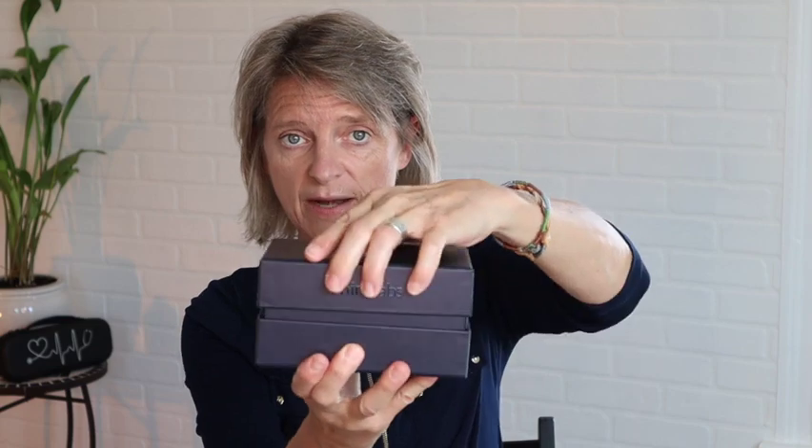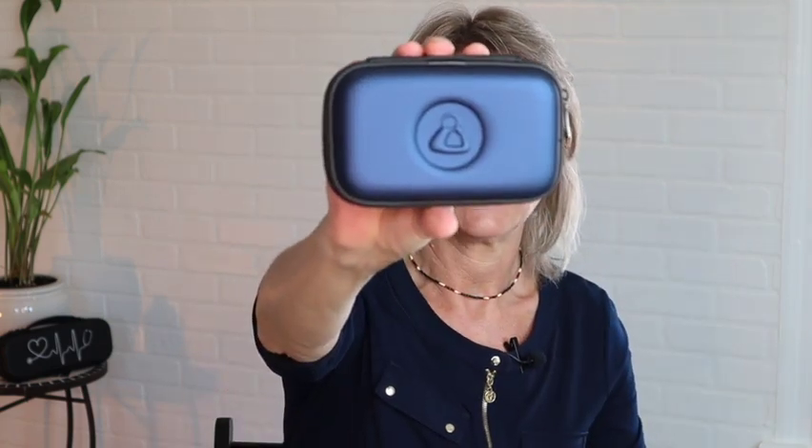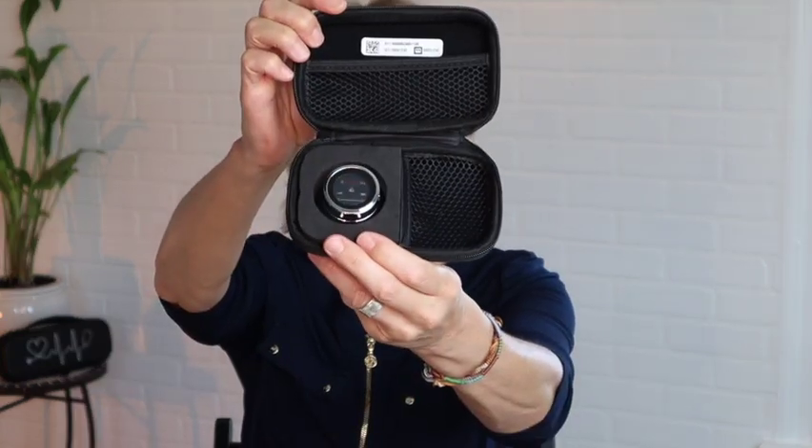So the first thing we're going to do is slide this out — it's just a cover, and then this is the actual box. We're going to open it up. It has the course booklet that tells you every little detail about it. It comes in a nice little blue case with the ThinkLab stethoscope logo right on the outside. This is the digital stethoscope. When you open it up, it's in a little case like that — it looks pretty sweet.